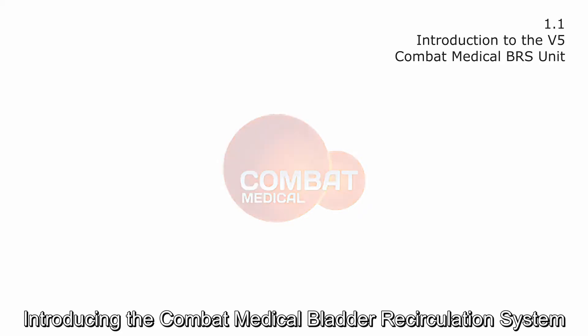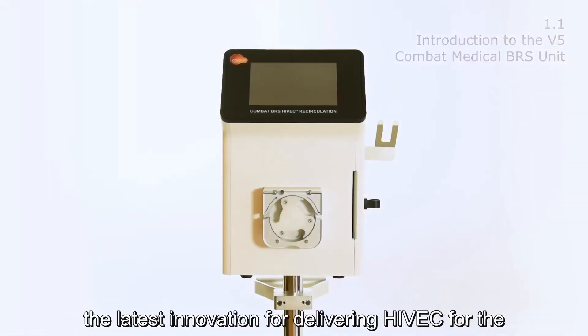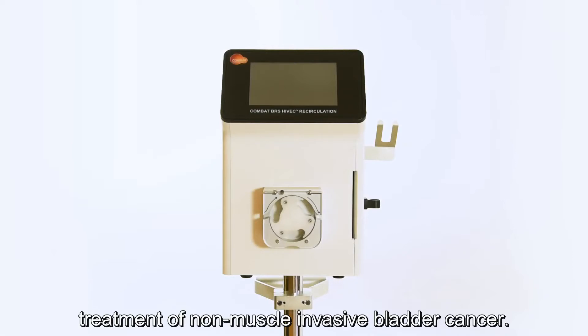Introducing the COMBAT Medical Bladder Recirculation System, the latest innovation for delivering HIVEC for the treatment of non-muscle invasive bladder cancer.